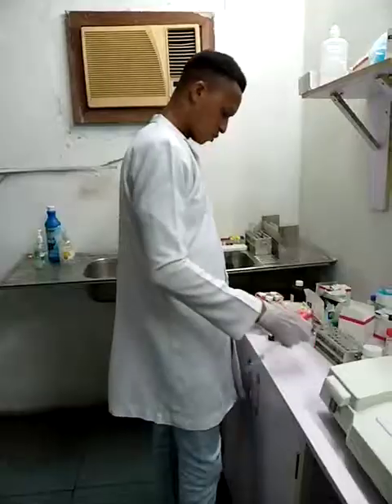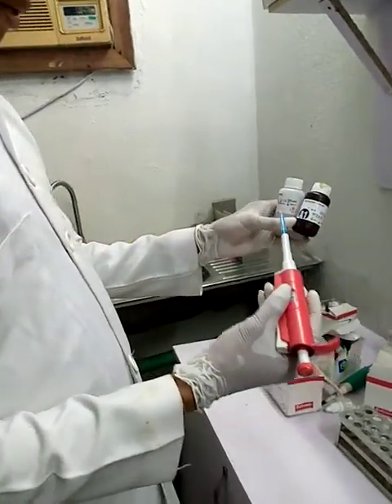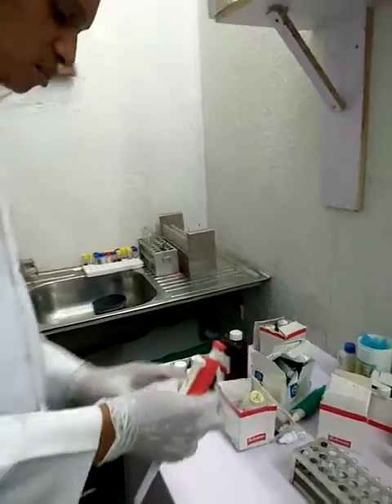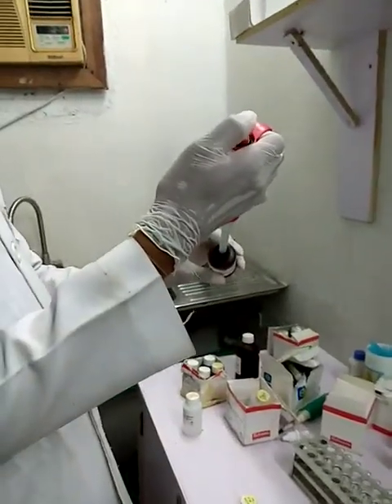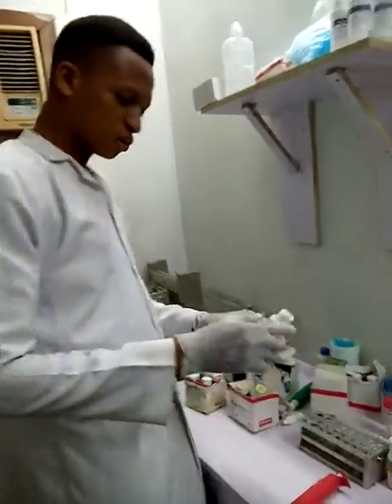Urea comprises two reagents, reagent A and reagent B. To run urea, pick 1,000 microliter of both reagents. 1,000 microliter of reagent A first, which is equivalent to 1 ml of reagent A of urea in the test tube. I will add reagent B later; I will come back to reagent B.